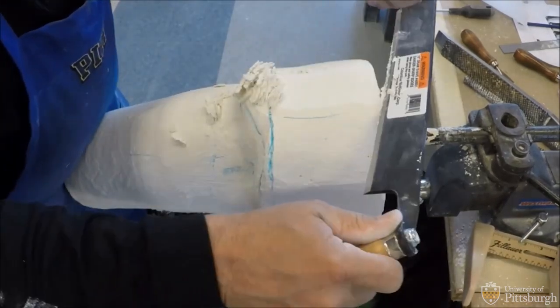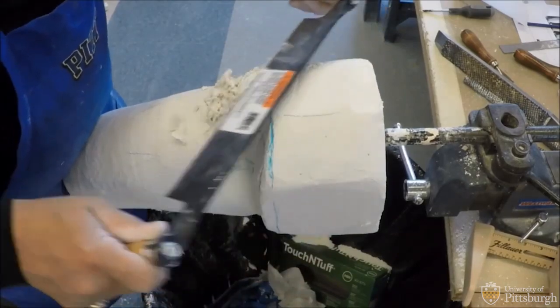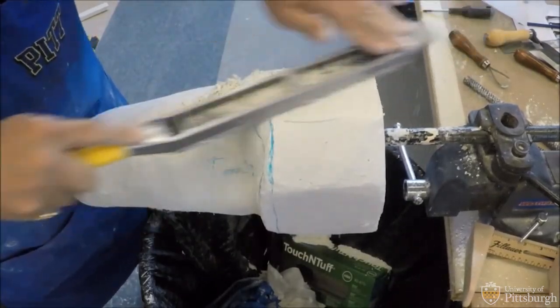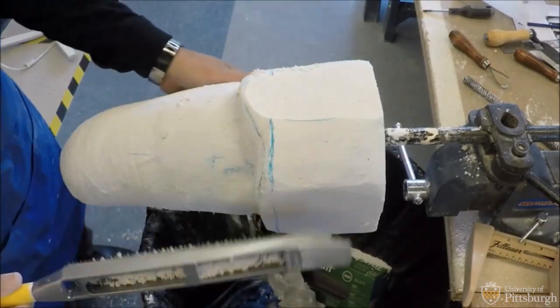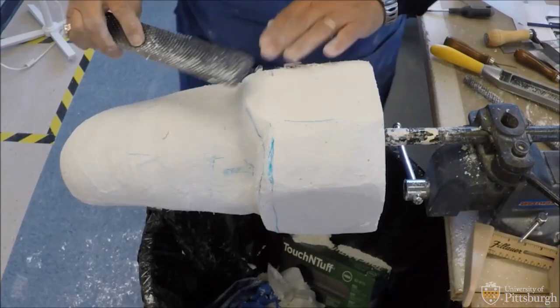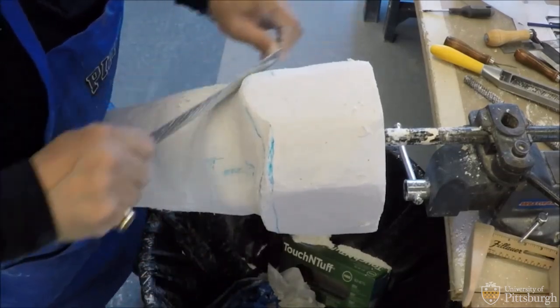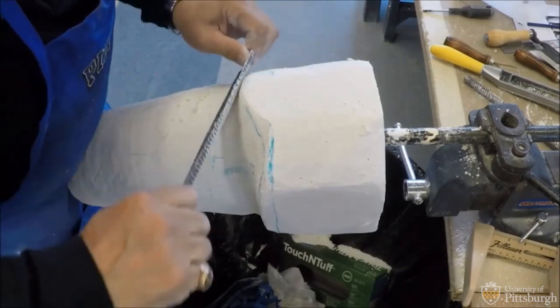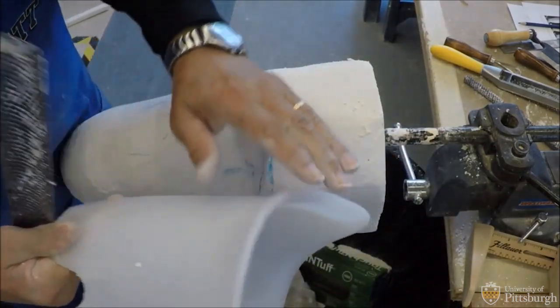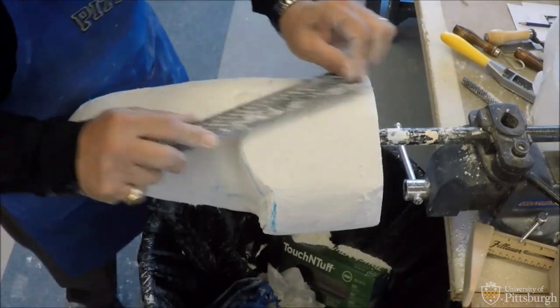You can use your flat rasp just as well. I'll take the edges off, and I'm getting into that so-called walled area of the glutes, and I'm trying to create pressure in this particular location. I can tell from my hand placement that this area pooched out, so I'm going to roll it medially.